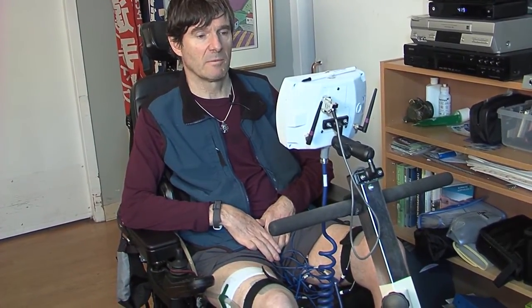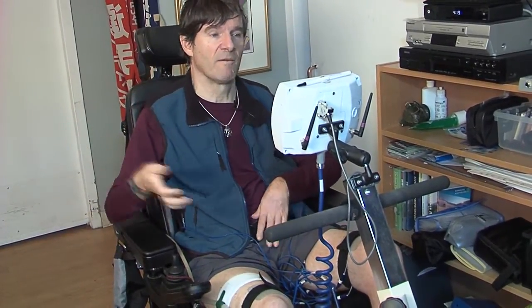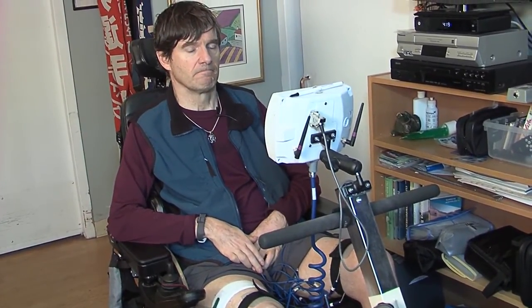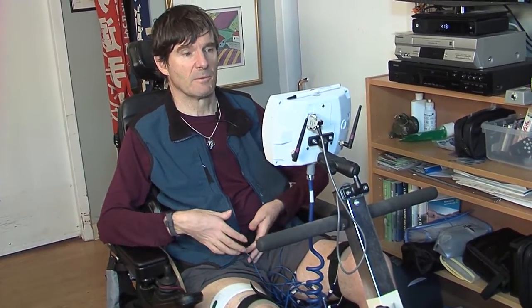I try to ride three times a week. Initially my muscles could only handle about 20 minutes, but within about a month I was able to increase that duration up to a full hour — and that's a typical kind of clinical progression that people would follow.